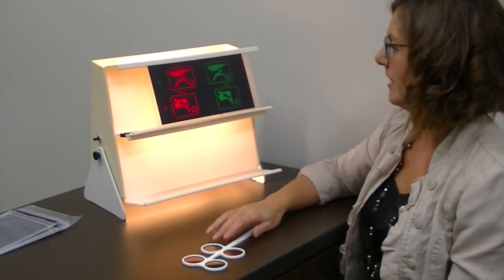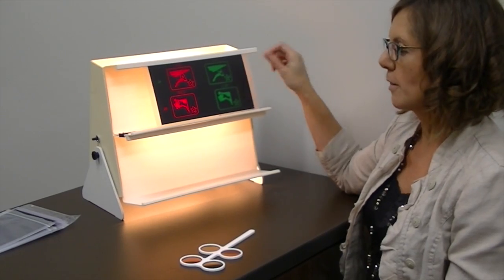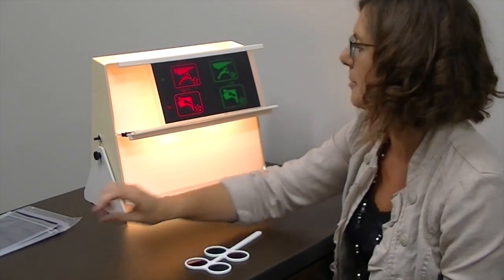Hi, I'm Dr. Julie Steinauer and I'm sitting in front of a new set of little cards we have. There's a whole stack of them here.